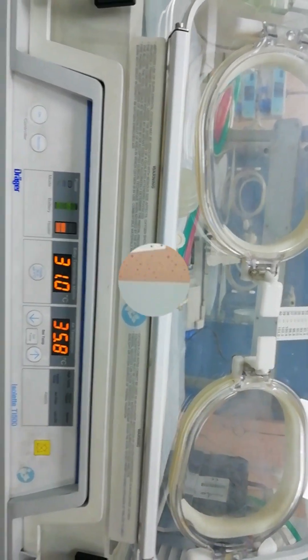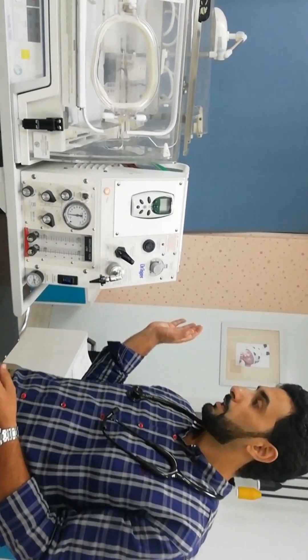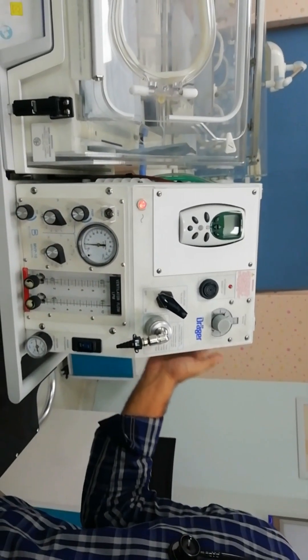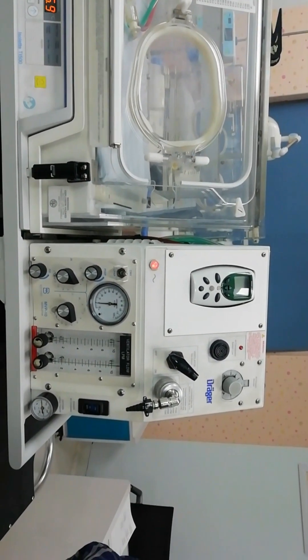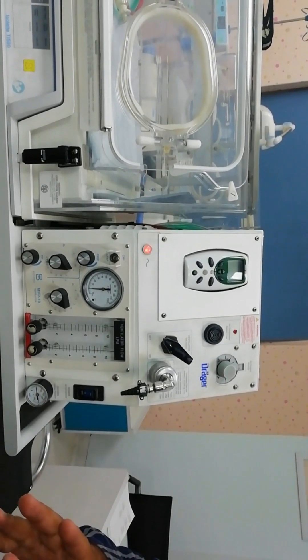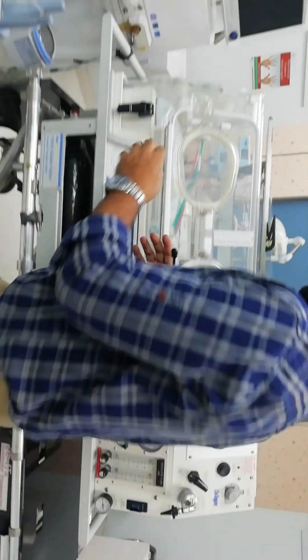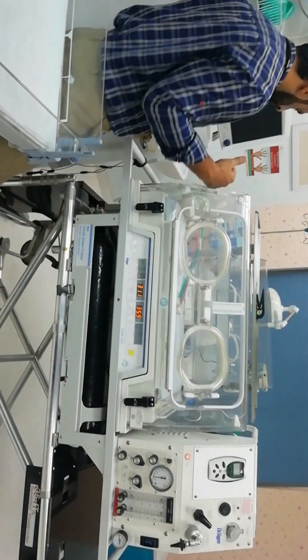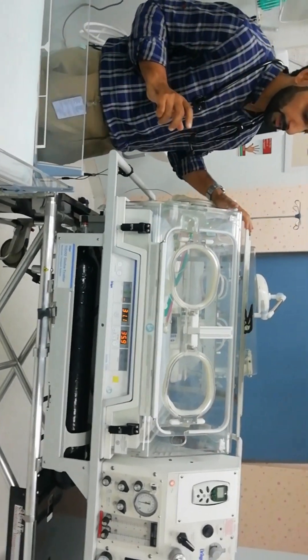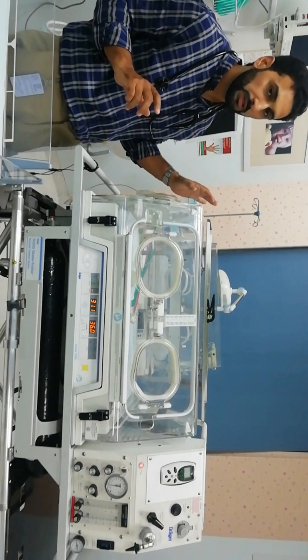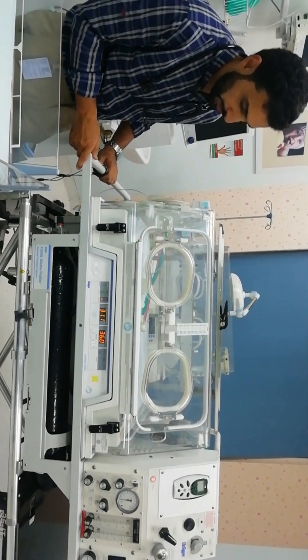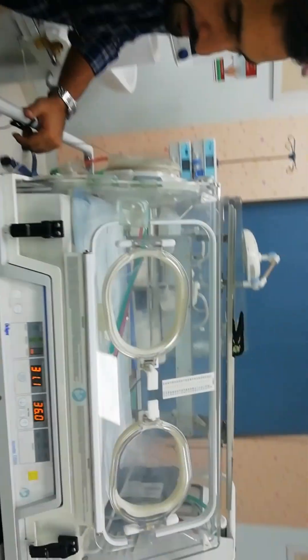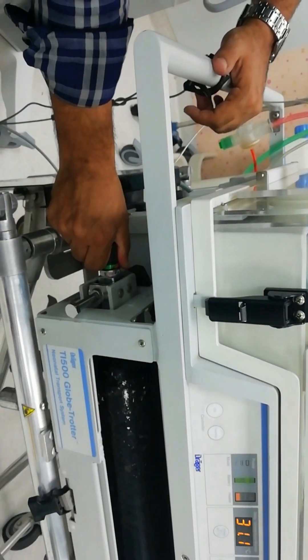Now coming to the second part, switching on the mechanical ventilator. We would start by opening the gas flow. We have two gas cylinders and also you can connect your transport system to the gas inside the ambulance. But we are going to use for now the gas cylinders.